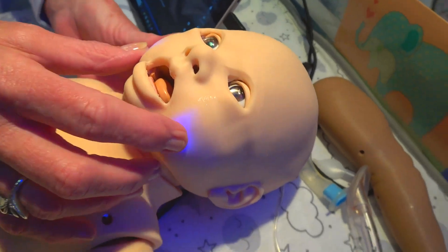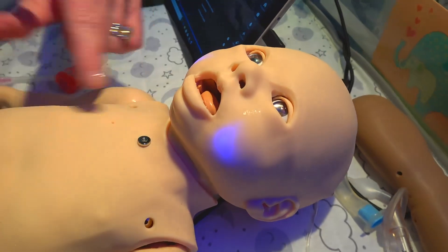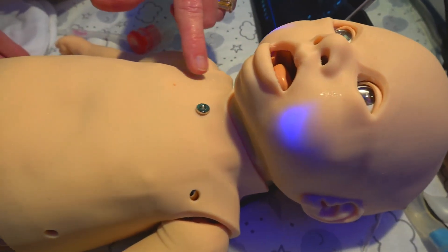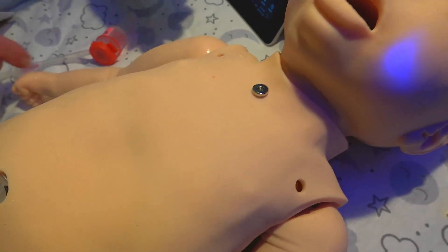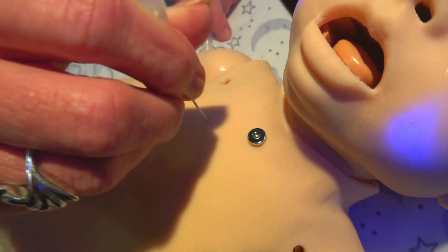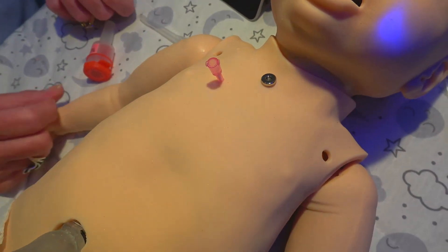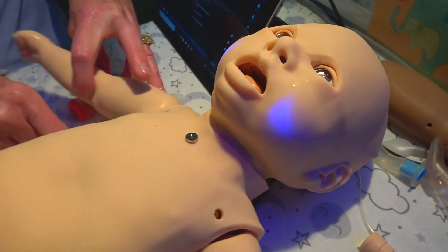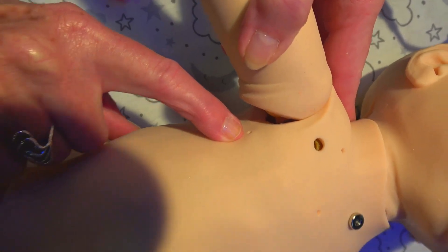As you can see right now, we've got cyanosis — circumoral cyanosis — to depict respiratory distress. Moving down the chest, we can also mimic a pneumothorax on Luna and identify needle decompression by sticking the needle into this port right here and resolving your pneumothorax. Luna also has a unilateral chest tube site on the right side where we can put in a chest tube.